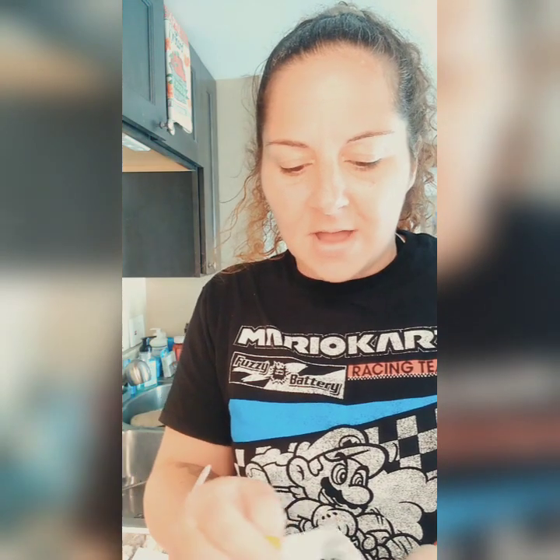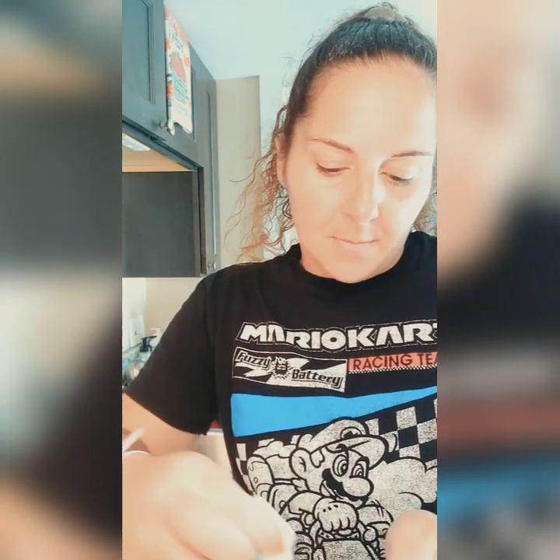If you're going to use adhesive, please make sure you dry your denture and make sure your gums are somewhat dry as much as you can — that's how adhesive works. I'll be doing my soft reline next week; I didn't do it for my top yet because I want it to be fresh for both. In my opinion, for the first week, don't worry about wearing your denture constantly — you heal so much better. If you have a tight denture on top of swollen gums, you lose blood circulation, which takes a very long time to heal and close the sockets.